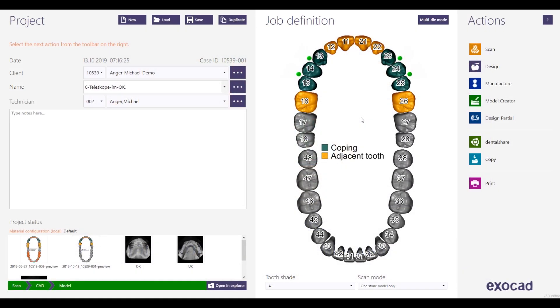Hello and welcome on my screen. This is Michael Anger. In this video I would like to show you how to connect telescopes in the partial software with your partial framework.